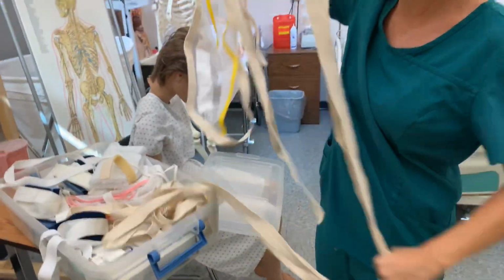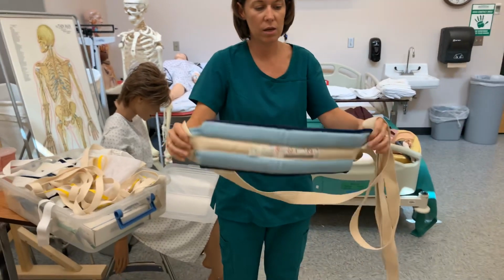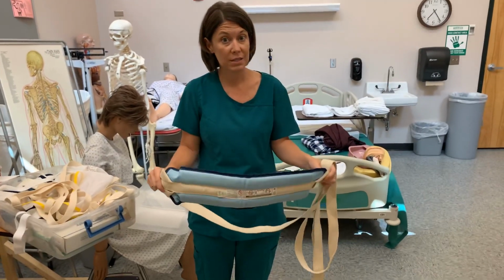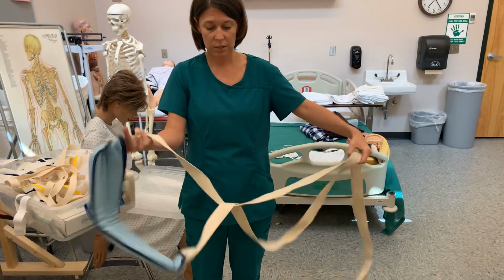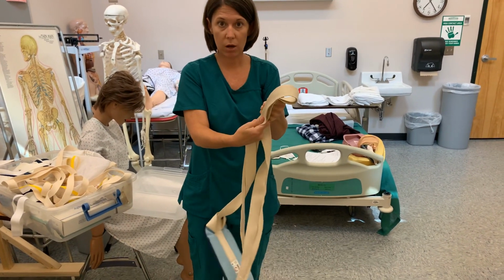Okay, so we'll just use right here at this area. This is an example. This is kind of like a waist restraint, and if you think of this as almost like a seat belt for the client. A lot of times you may see a client is in a wheelchair. This is placed around their waist. This goes to the back of the chair, and then you would just do that slip knot for that.